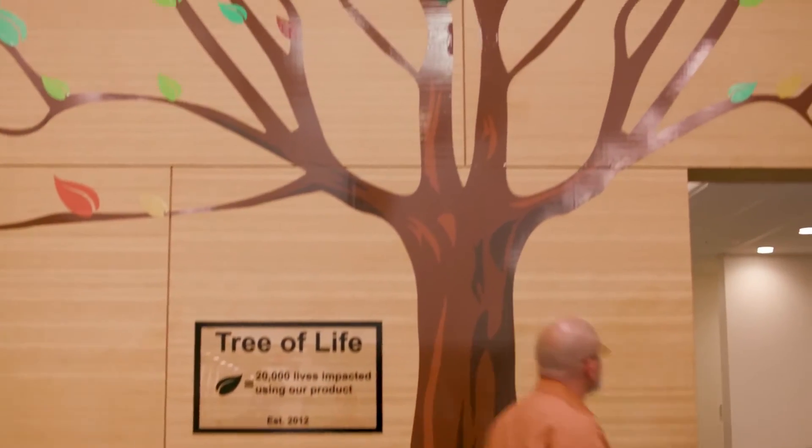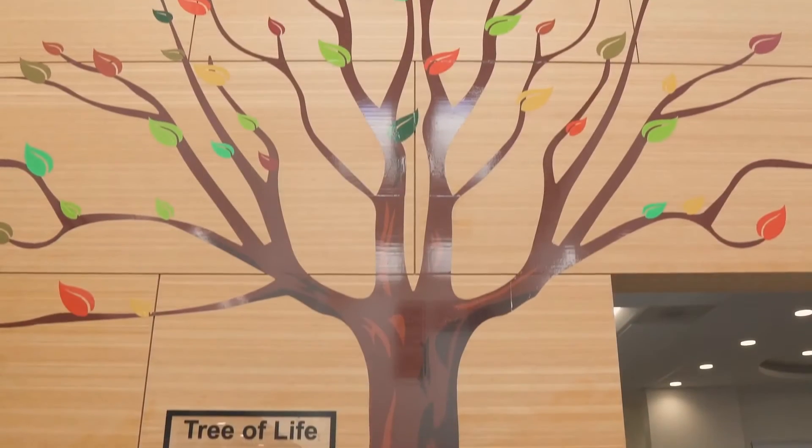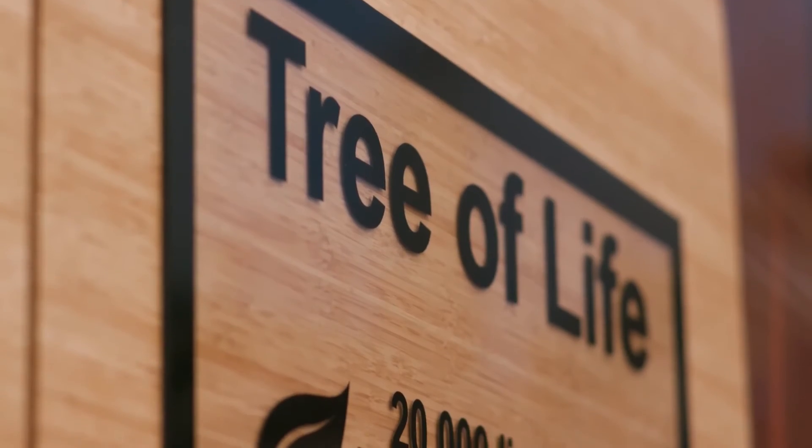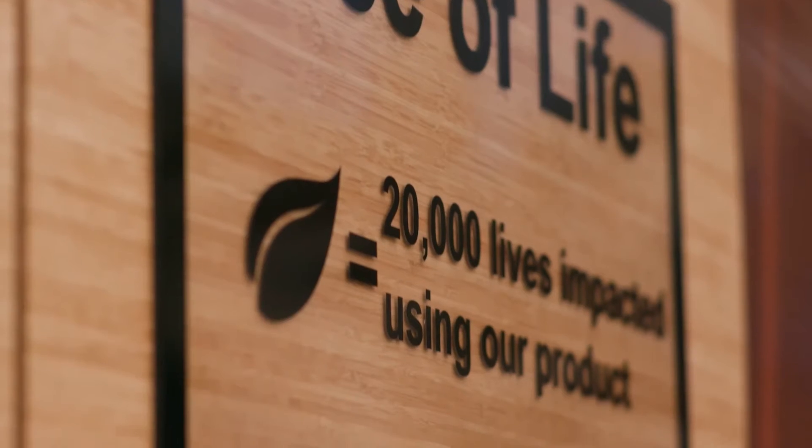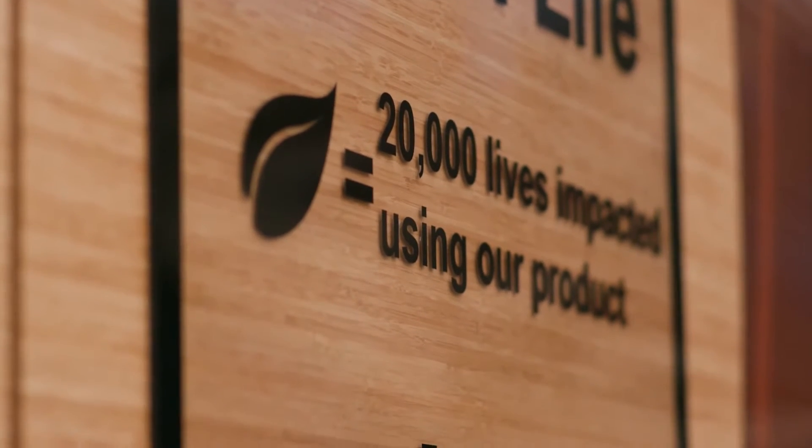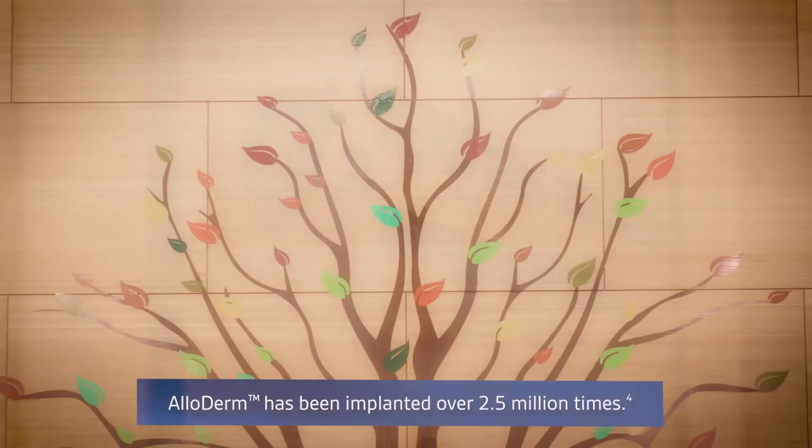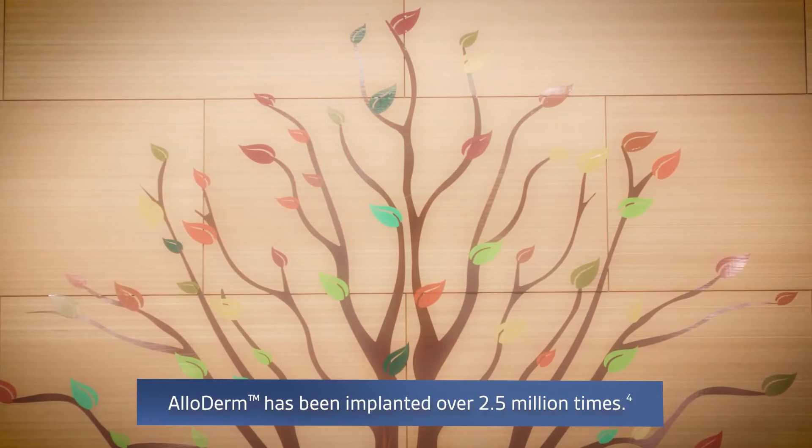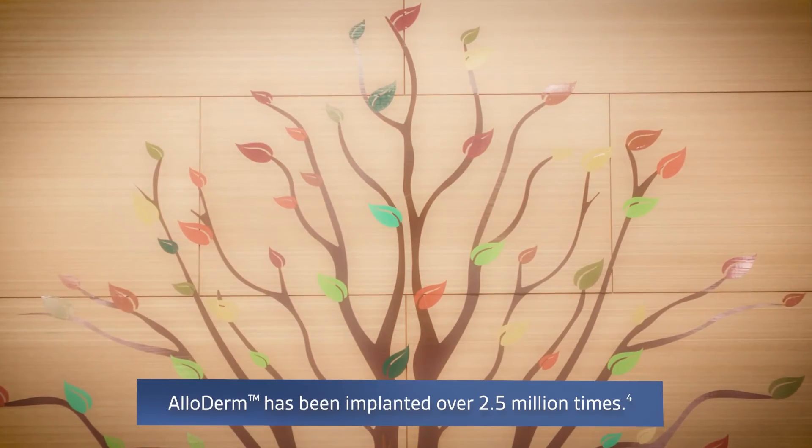And then there's the tree of life. Each leaf on this tree represents 20,000 patients whose lives have been impacted by products distributed from this facility. As of today, Alloderm has been implanted more than 2.5 million times.